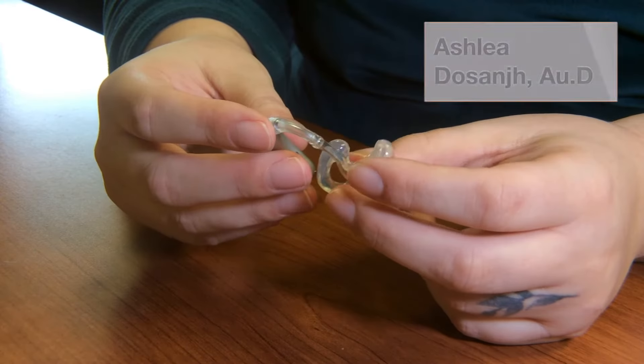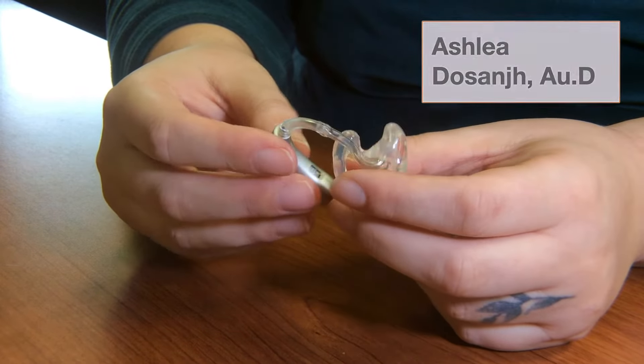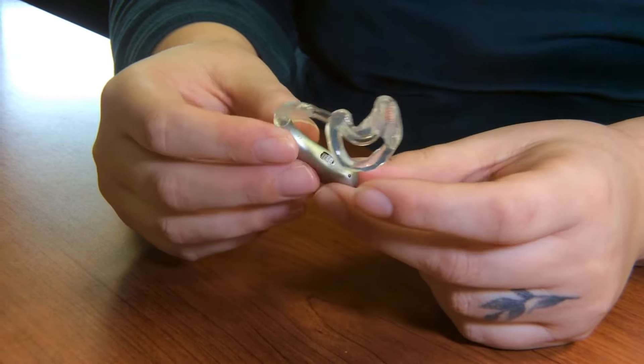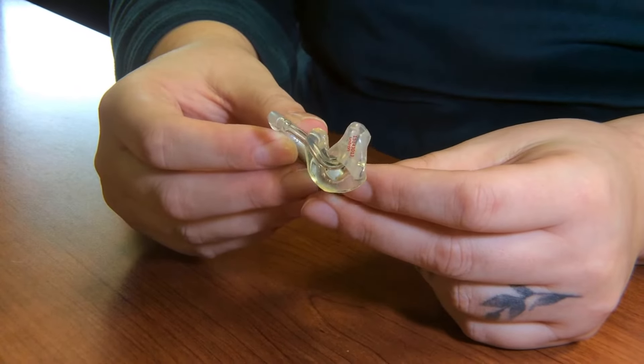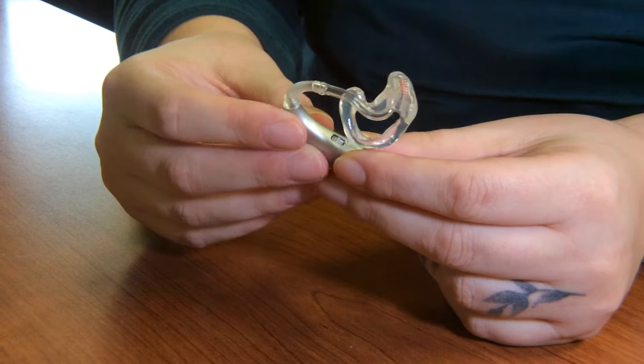Okay, so I am Ashlea Dosanjh. I'm an audiologist, and today we are going to go over a visual check of a rechargeable BTE. BTE stands for behind the ear hearing aid.